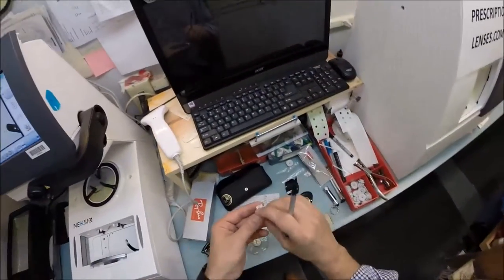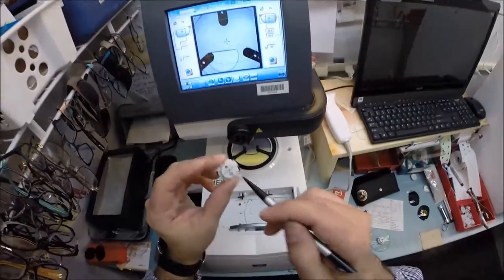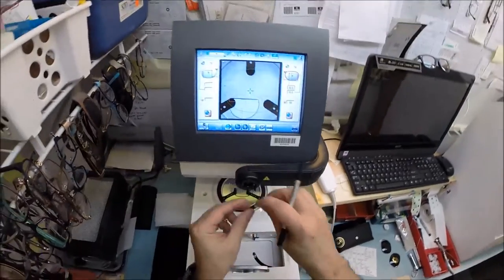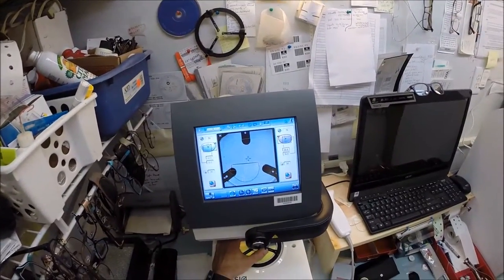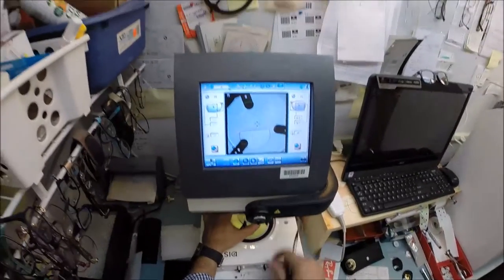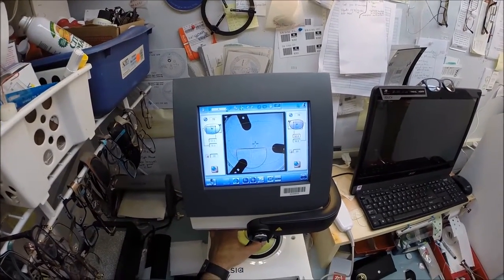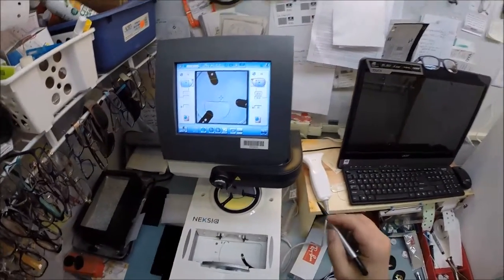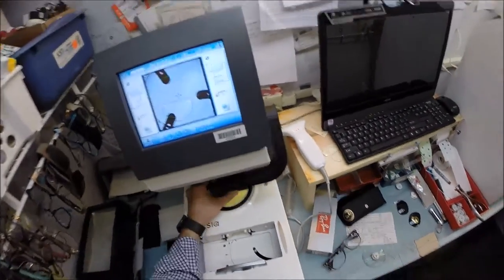Let's do the same thing for the left lens. Let's rotate that and double check my math real quick. I'm gonna line that magnet up right there. Reed's price keeps going up if I break stuff. Okay so let's get this lined up. Does it matter how straight your lens is? It does? Okay, I'll pay attention then. Let's hit that button. The arm's gonna come down and drop the block onto the left lens.